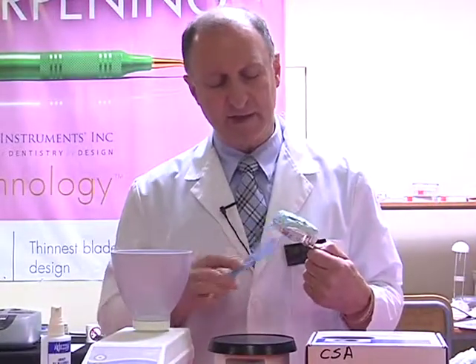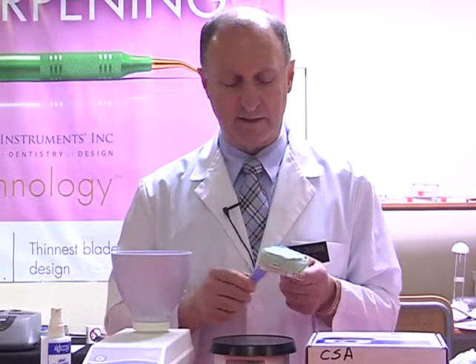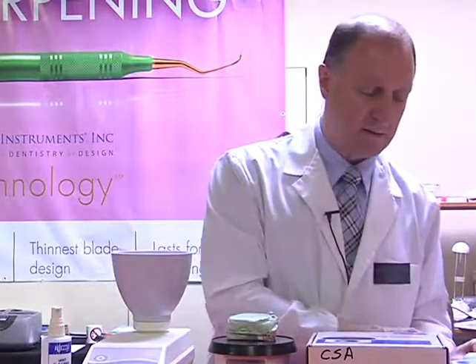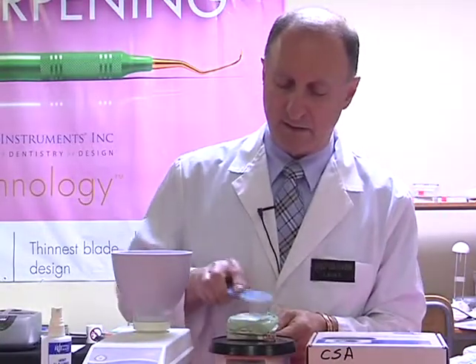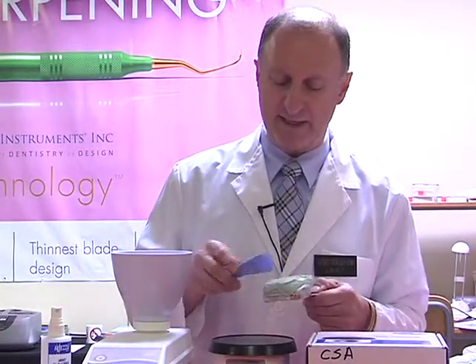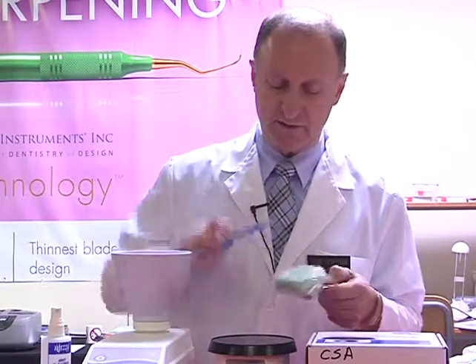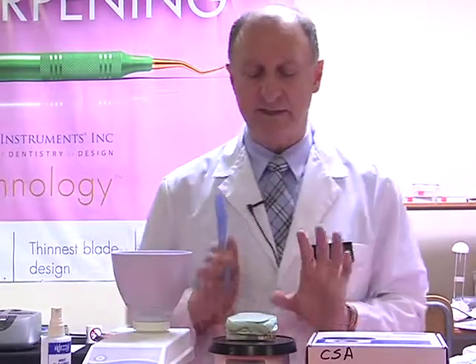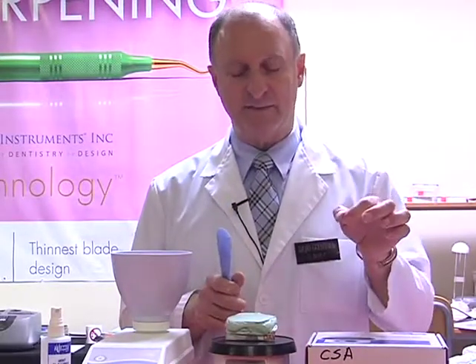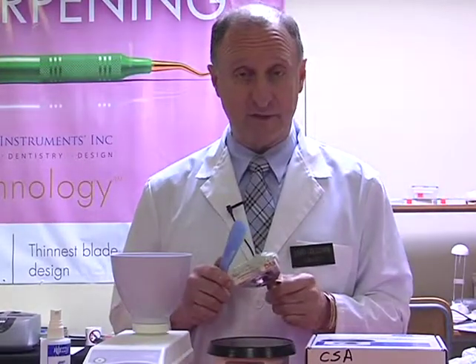So we'll come back to this after the stone itself has set, and carve a little bit more off over there. Just making sure the surface is nice and flat so that once it rests on a surface later on, it doesn't fall around. And I will leave this then to set, and then finally trim once the stone has been separated from the impression.